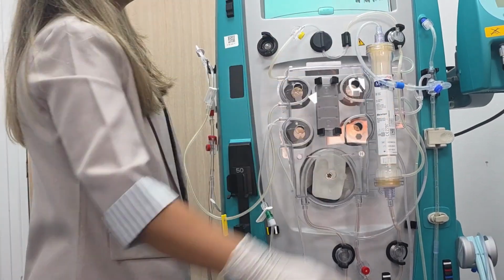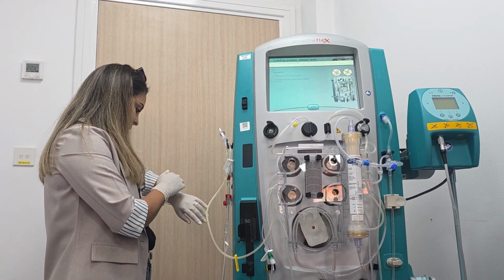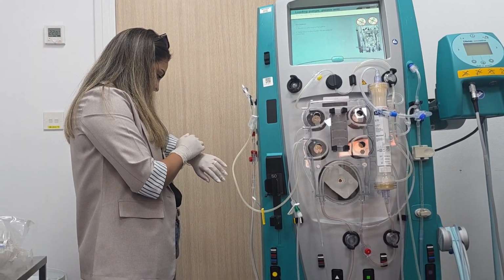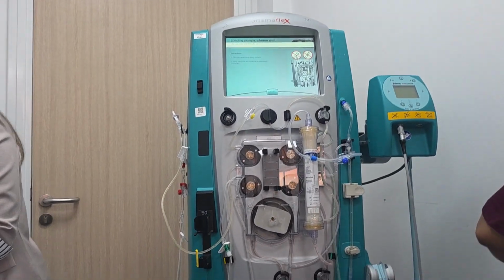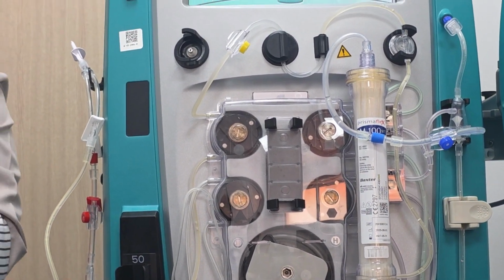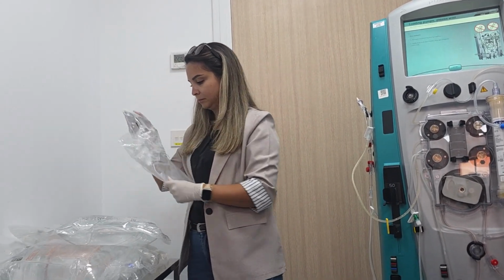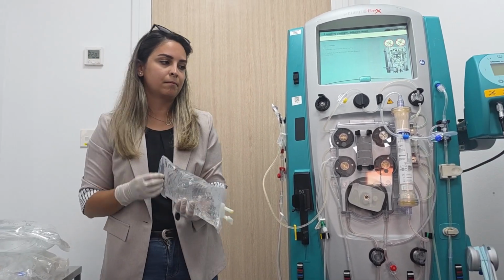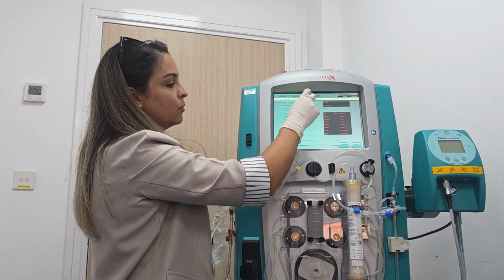Then we press load. So confirm set loaded, M100.